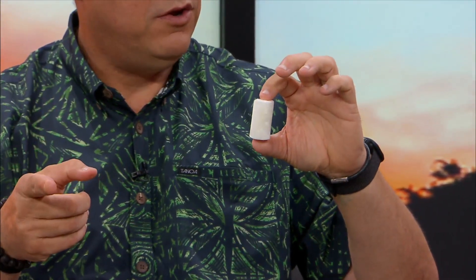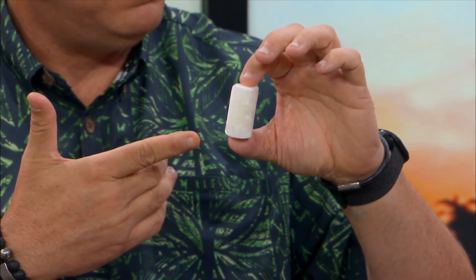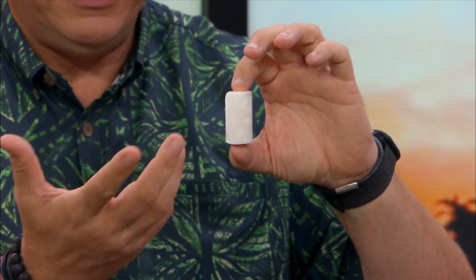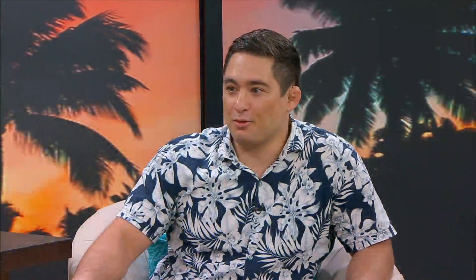We saw some video of that. Yes — you're basically injecting the fluid into this and it soaks it up. This is nuts. It literally looks and feels like a styrofoam peanut. And if you get it wet, it starts dissolving into a substance that's a little more moldable when we put it in.